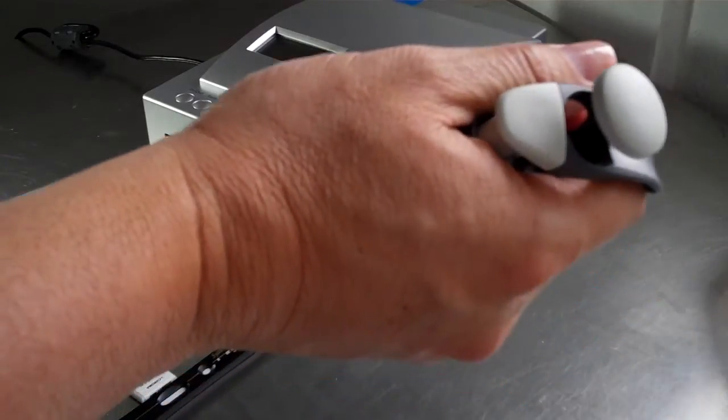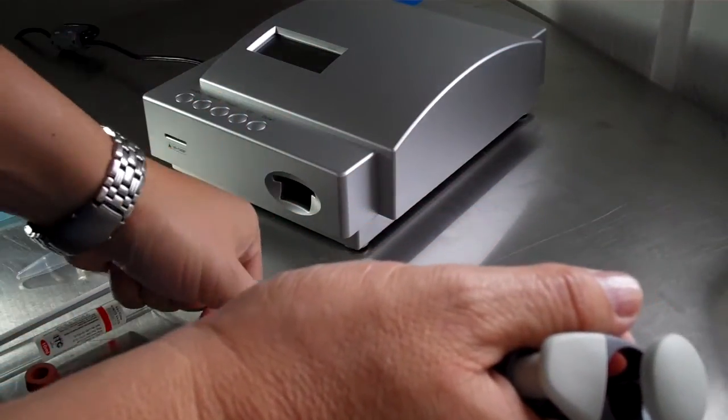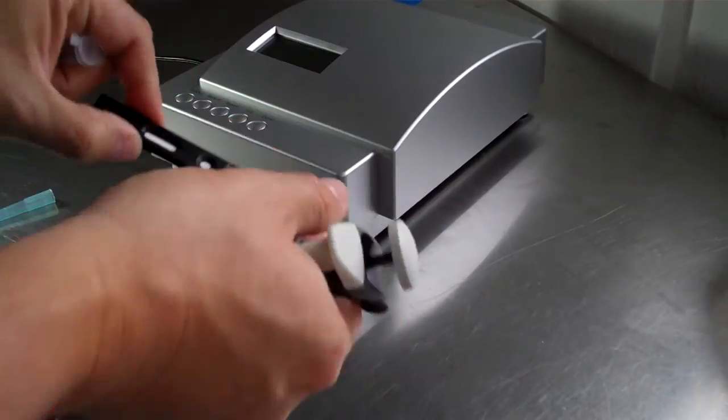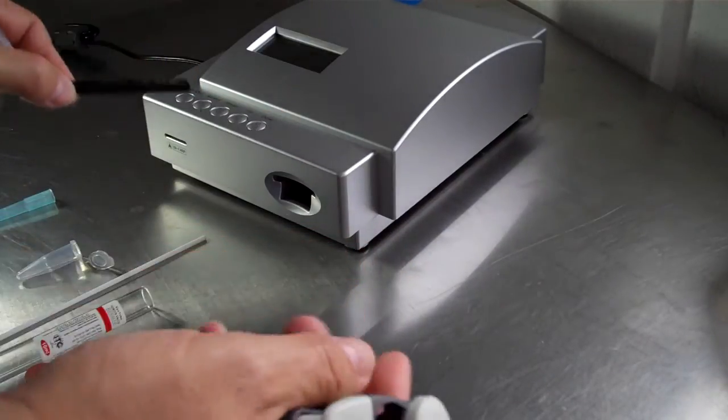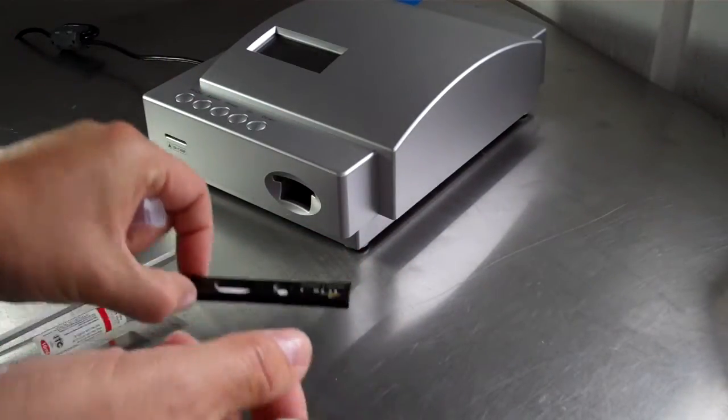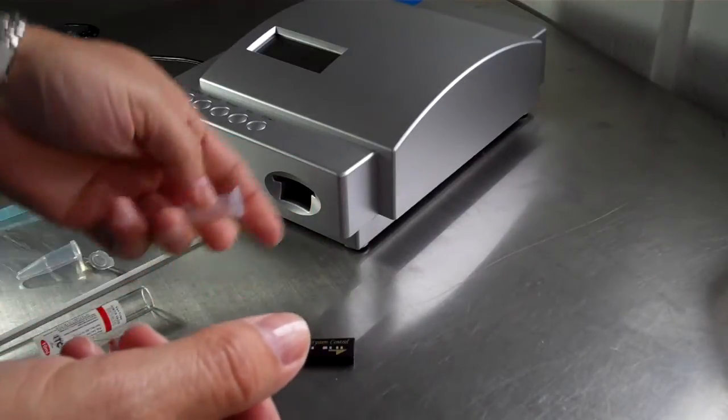There's a buffer that comes with the progesterone kits. There's 25 progesterone tests in each box, and it comes with the slide and its buffer.